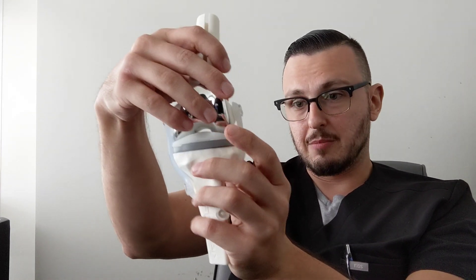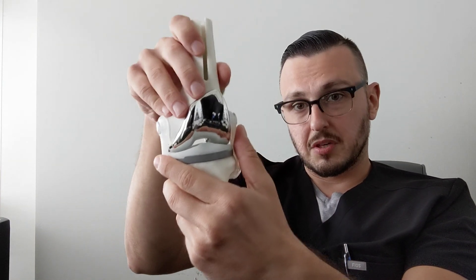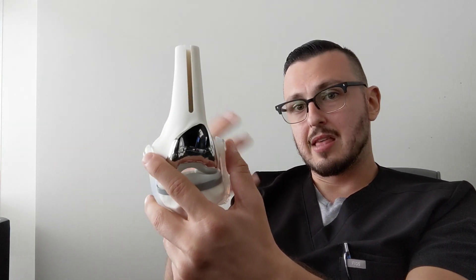The system that I use utilizes a CT scan of the knee before surgery. So once the decision is made for total knee replacement, a CT scan is ordered to get the exact shape of the femur and the tibia for each individual patient and see what the deformity is and what the size is of the entire knee to help get an idea of the types of implants and the positioning for these implants. So the CT scan is obtained preoperatively.